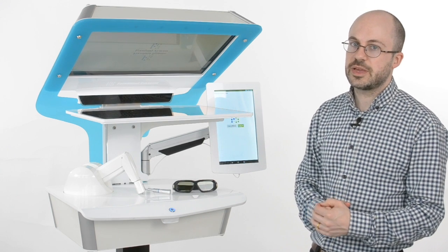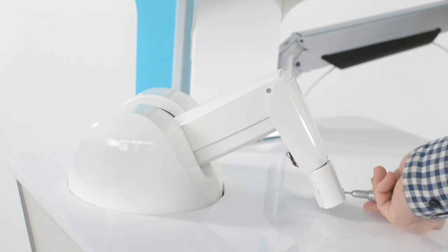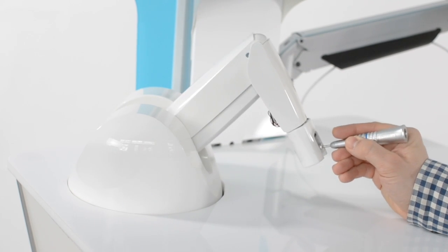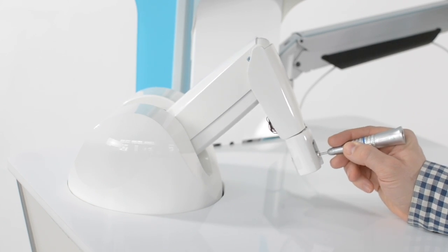Third, we have a custom-made haptic device that can handle larger forces and higher stiffnesses than previously. This is useful when you want to really feel the differences of various tissues like bone and enamel.